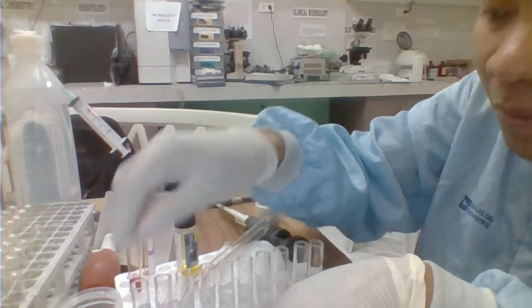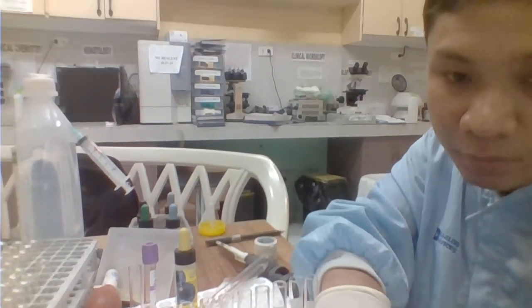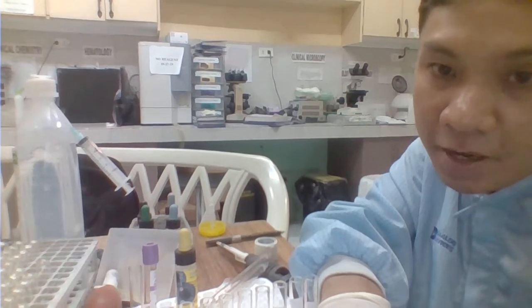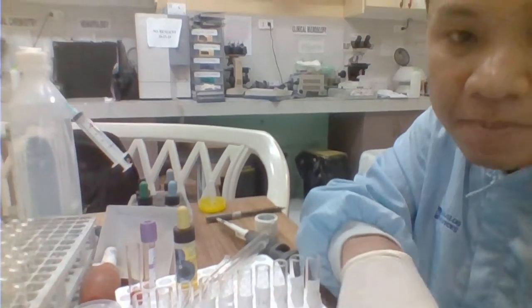Okay, so on tube number 1, we'll be adding 0.2 ml of our anti-B Antisera.